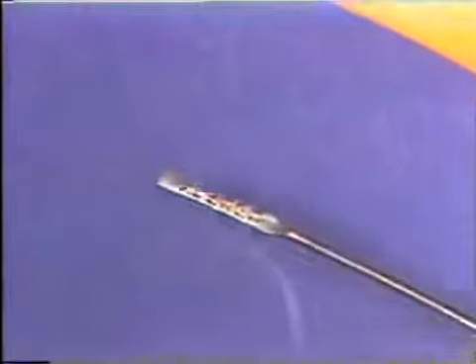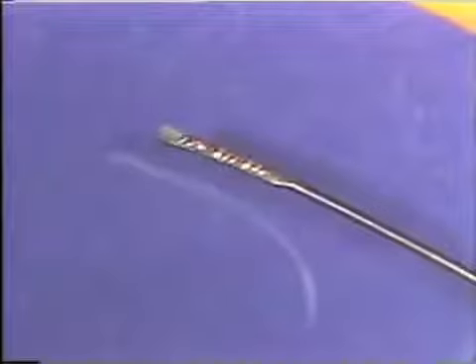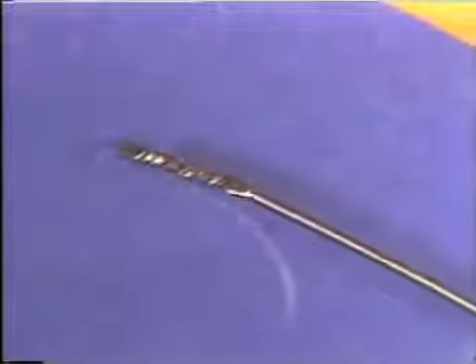Gold wires can withstand a lot more manipulation than stainless steel wires before breakage occurs. In other words, they will not fatigue as rapidly as stainless steel. Gold wires are used in those appliance situations where many adjustment bends must be made in a wire during the course of a treatment.